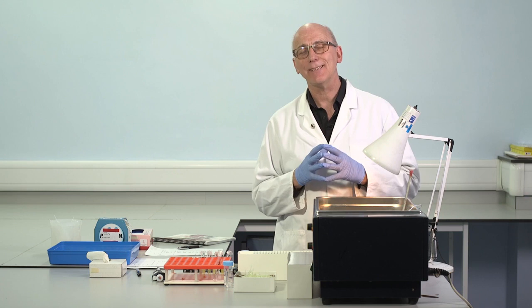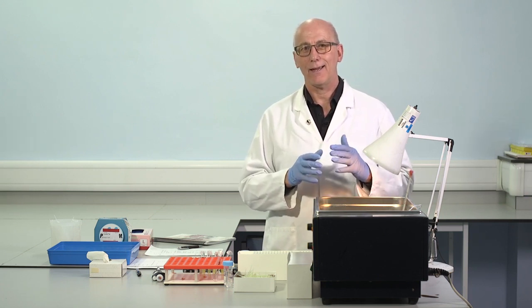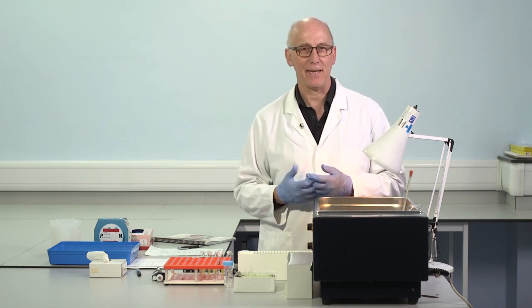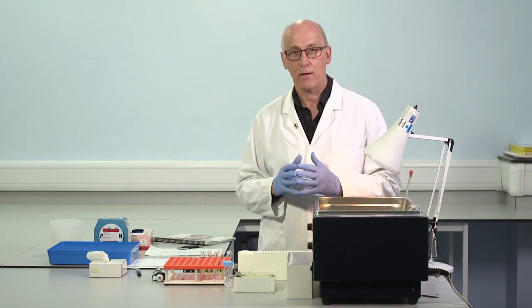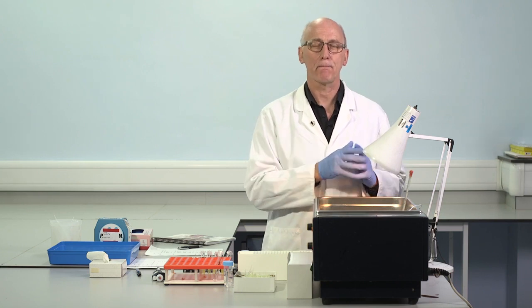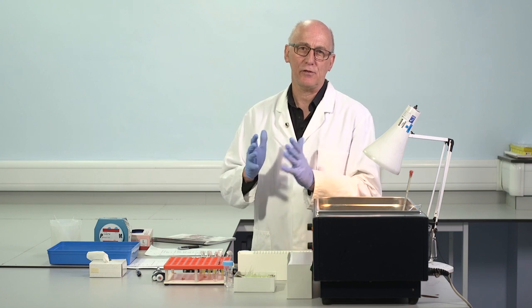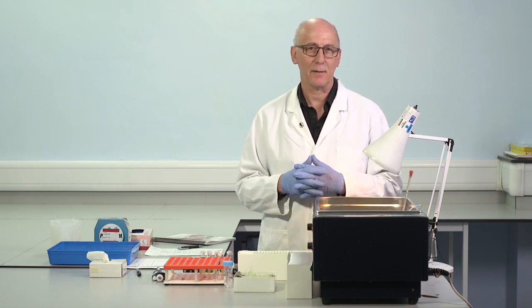It's key, absolutely essential, that each of those aliquots of the control material is identical to all the others, as close as we're able to make it. So we should treat each of those aliquots in the same way. So we thaw and pool. We make a single pool of all the material. We aliquot in a series of vials, and all of that aliquoting is done in small volumes. 0.5 ml is acceptable, 1 ml is acceptable.